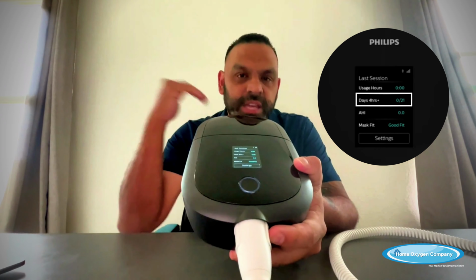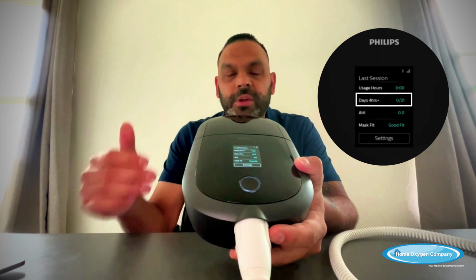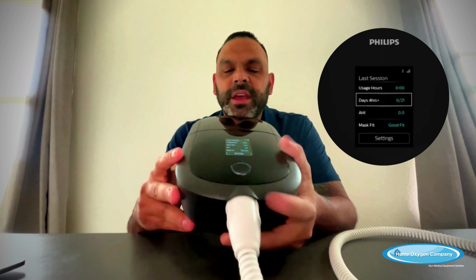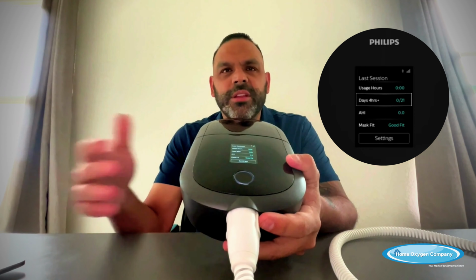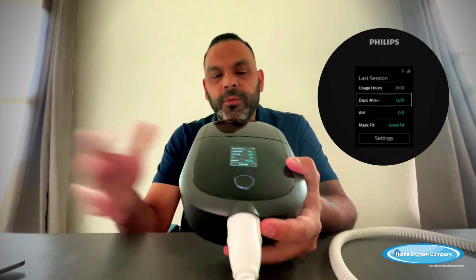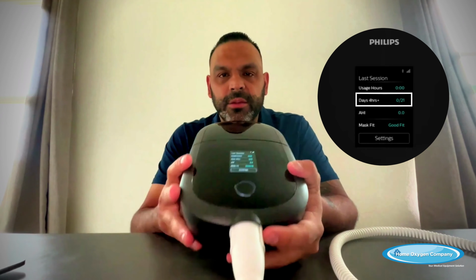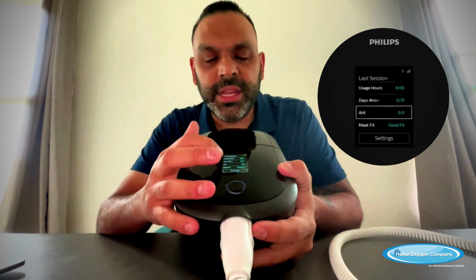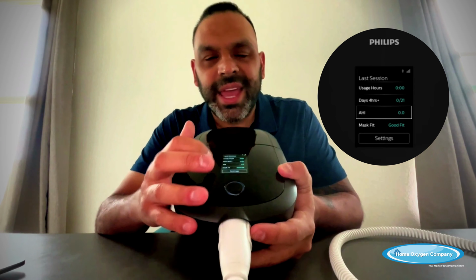And as you keep going, the minimum is 4 hours of usage per night for a day to count. So once you hit 1 day, it'll say 1 of 21, 2 of 21, and so on until you hit 21 of 21. And then I think when you hit 21 of 21, it'll say, congratulations, you've met compliance. So once we get that, then we go ahead and send that off, and you're in good standing pretty much with the insurance.